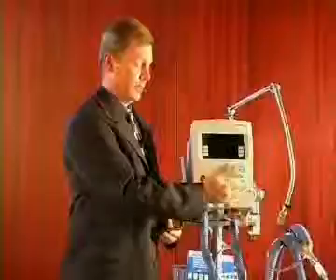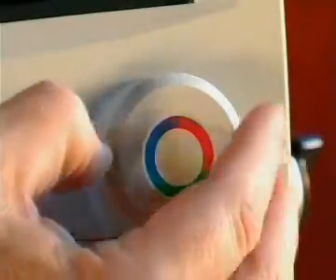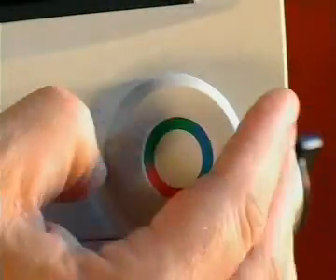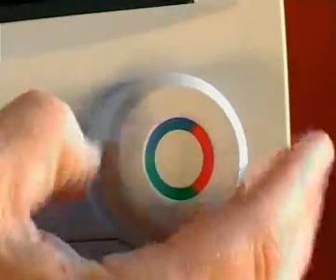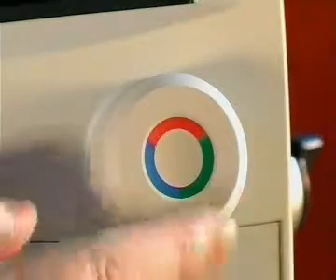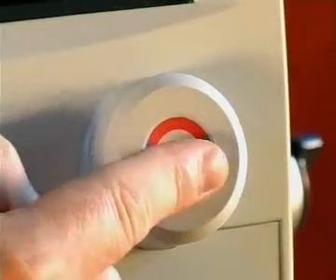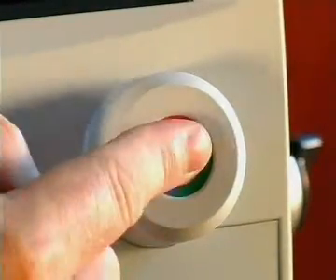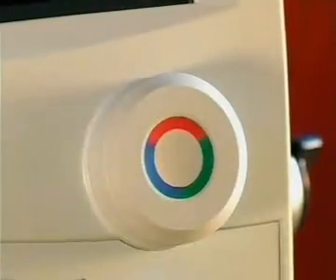The majority of time we'll be interfacing with the machine using this push and turn knob. The push and turn knob is how we will make selections and confirm those settings by pushing and activating that push and turn knob.